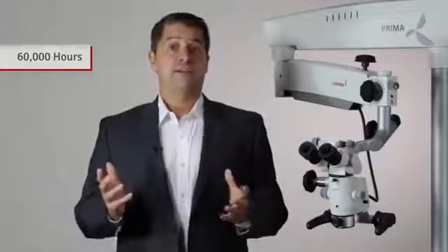Another notable feature of the LED is its life expectancy. The Prima's LED offers up to sixty thousand hours of life, whereas xenon bulbs typically last no more than five hundred hours, not to mention they're expensive and disruptive to replace.